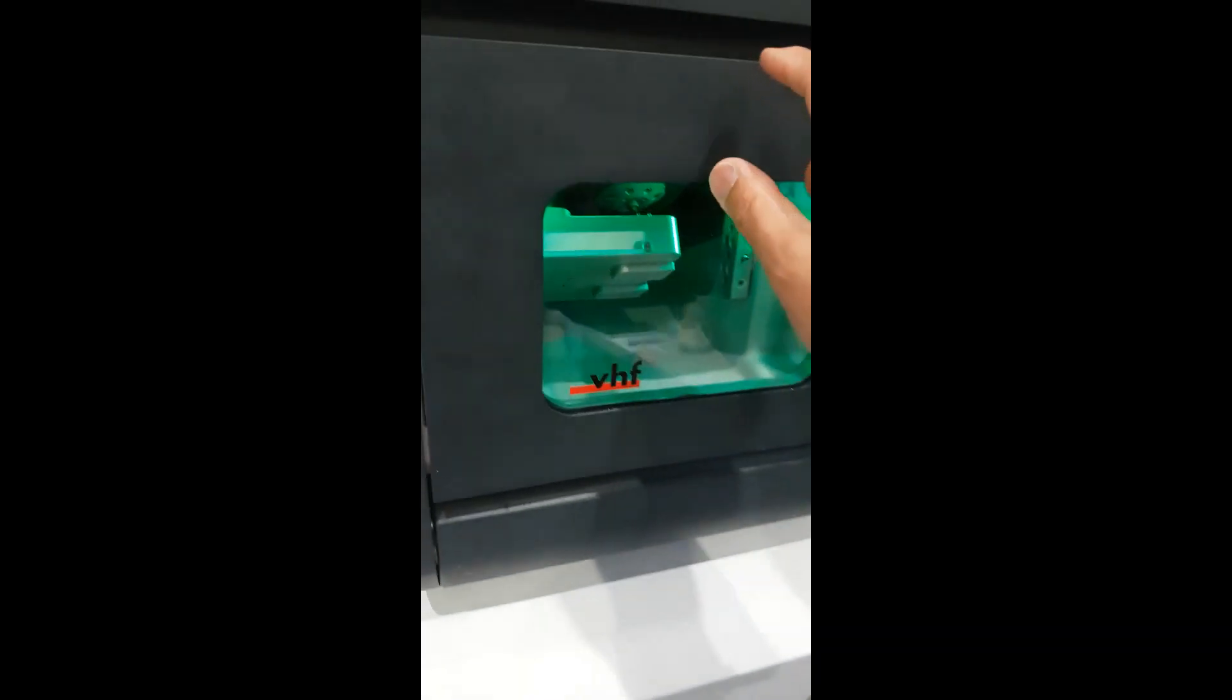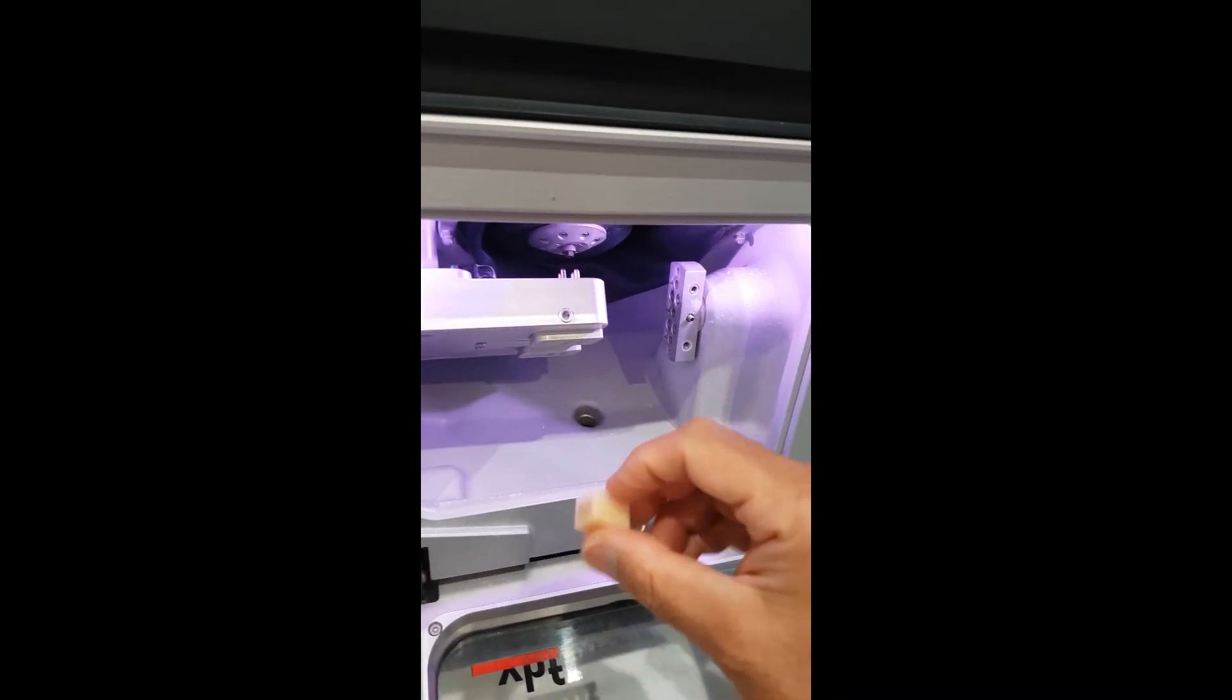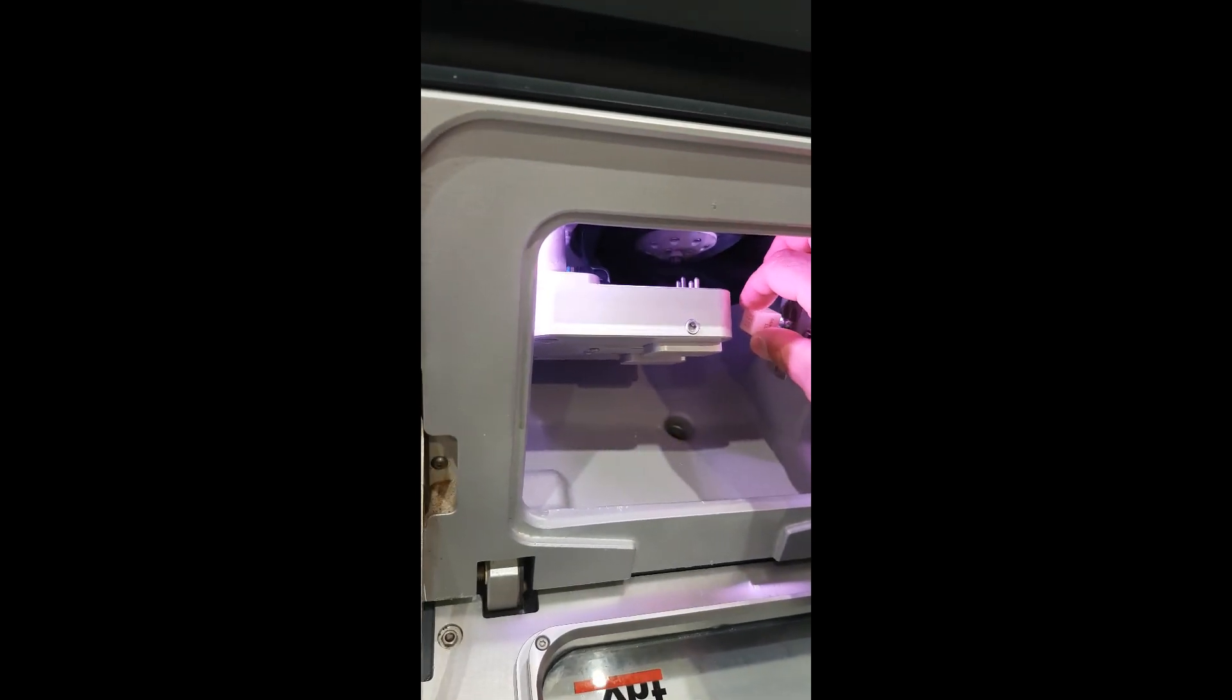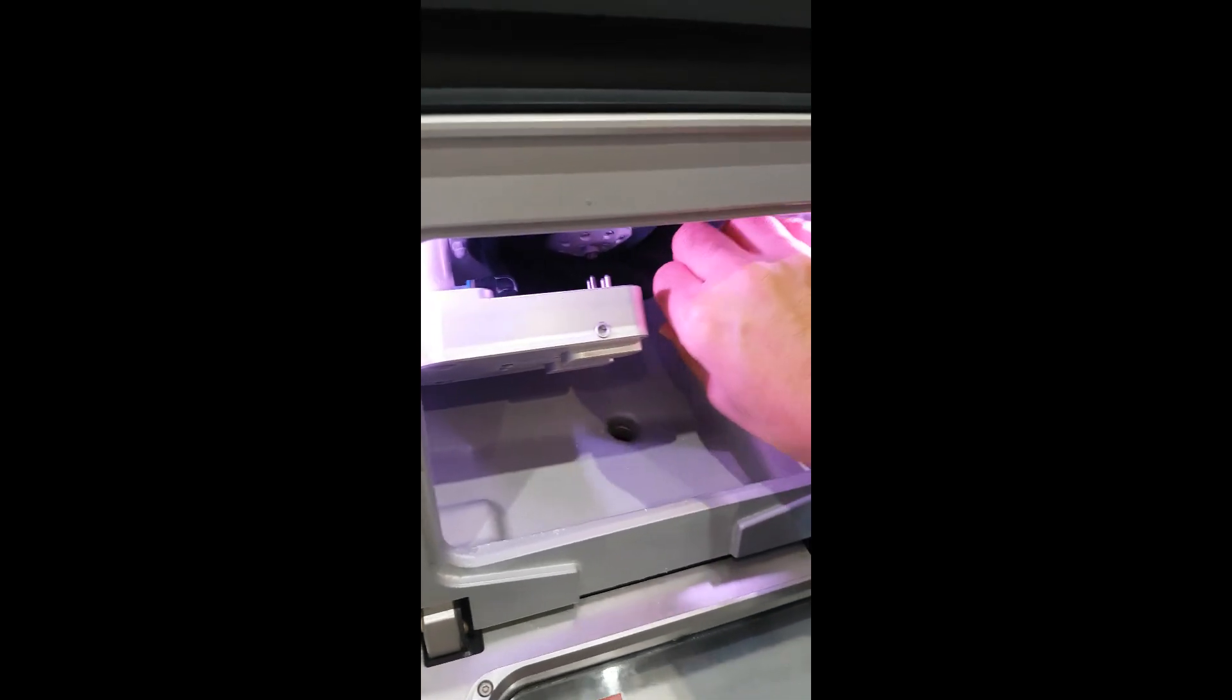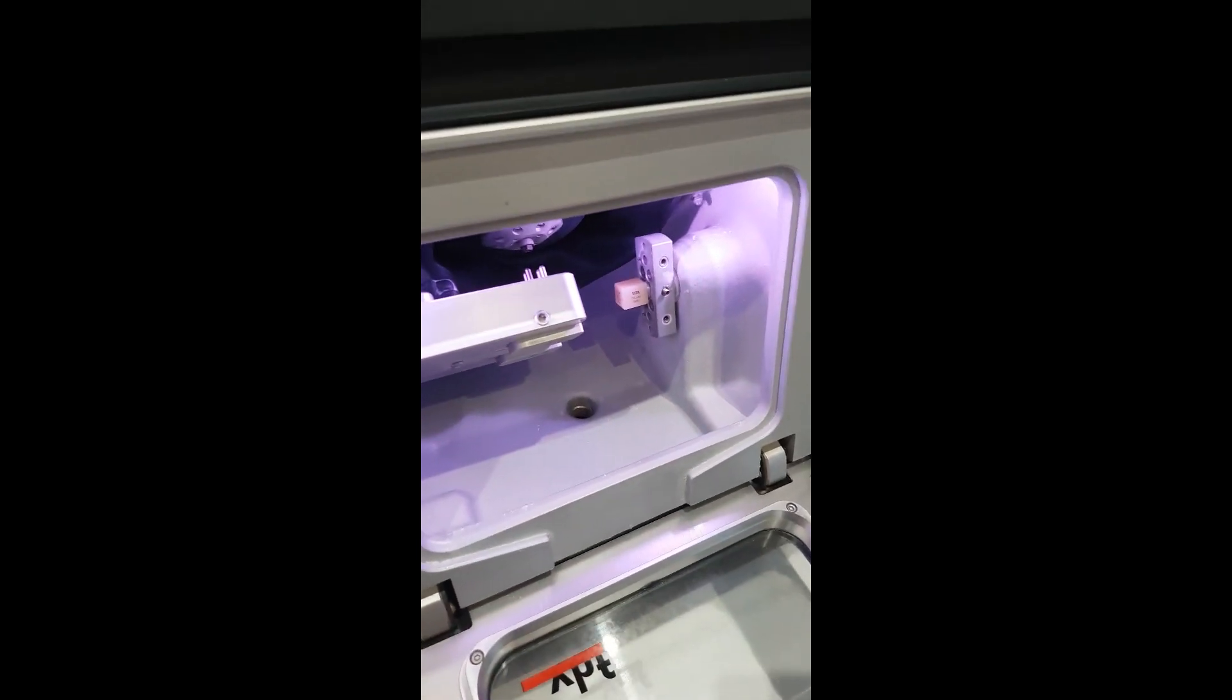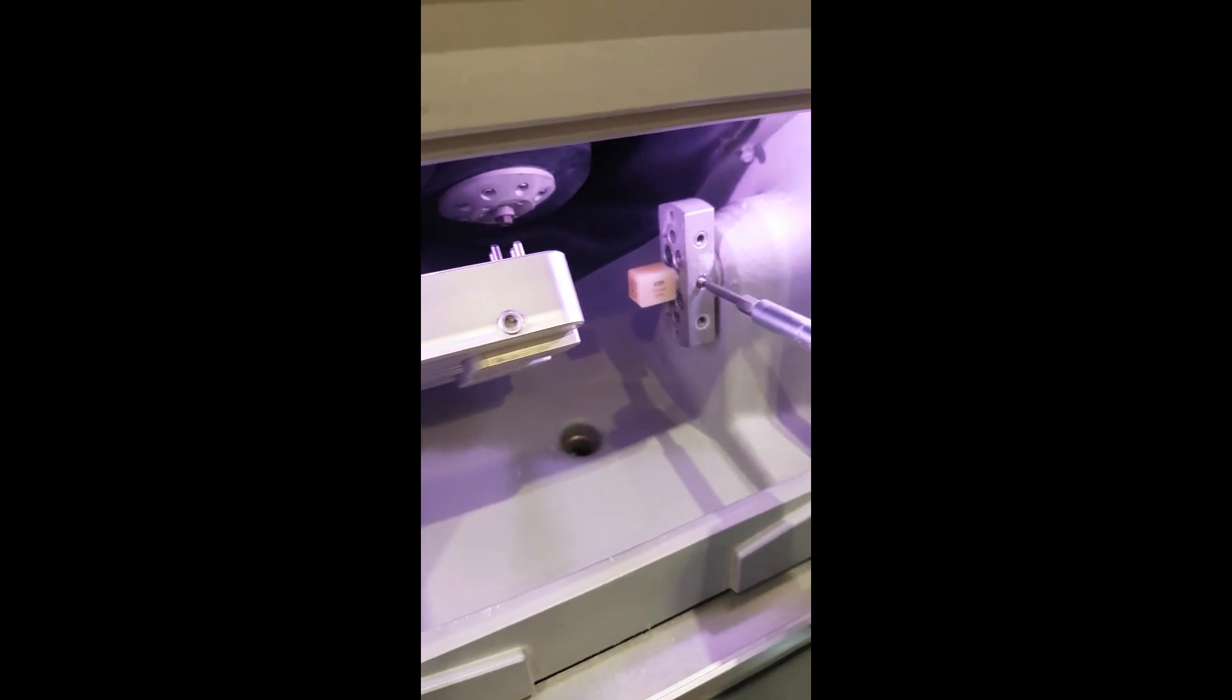Now this is a VHF N4. It is the ideal machine for a small laboratory or an in-house laboratory. As you can possibly see here, it will hold three blocks at a time.